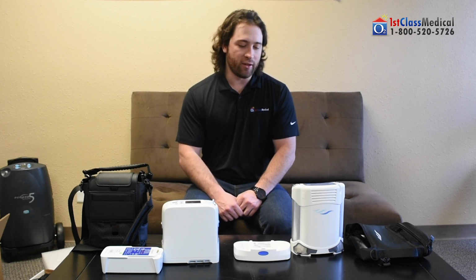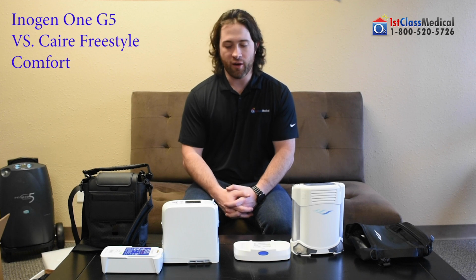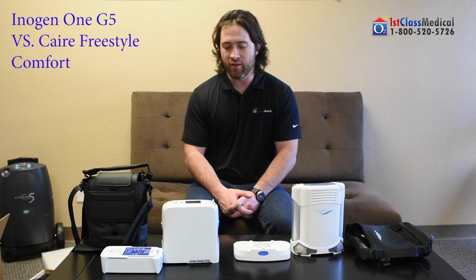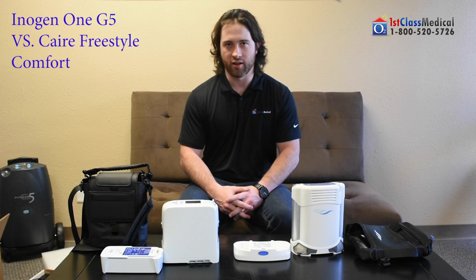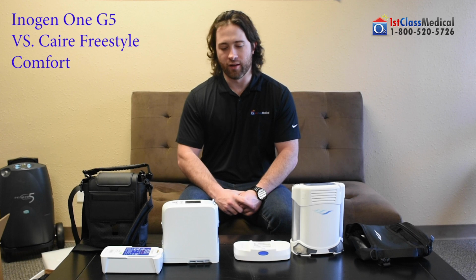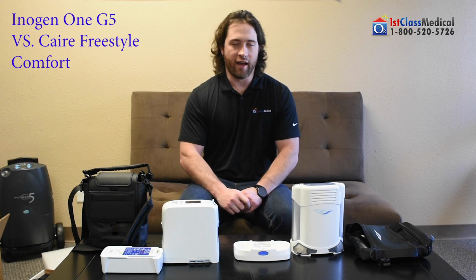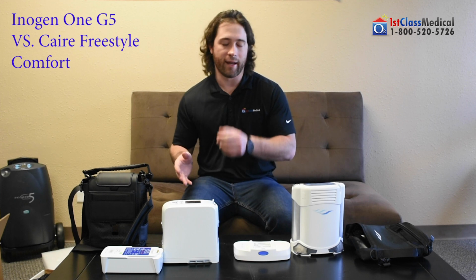Today we're going to discuss something very important. Basically the differences between the two most popular units on the market. Inogen has been a well-known brand that has gone many years with really nobody to compete with. The Inogen units, I'm sure you've heard the name. If you've seen the commercial on TV about a portable oxygen concentrator, you've seen the Inogen One portable concentrator, whether it was the Inogen One, G2, G3, G4, and now G5. They've made it to the 5th generation, and they've really done a lot to enhance the unit from where it began to where it is today.